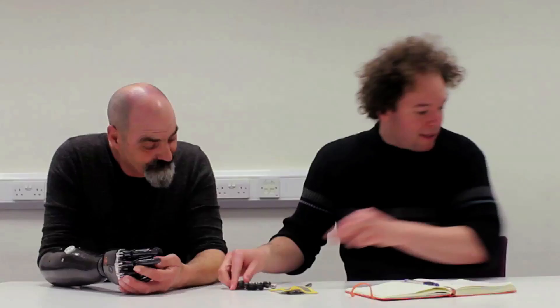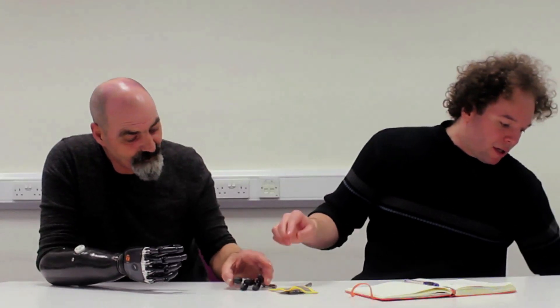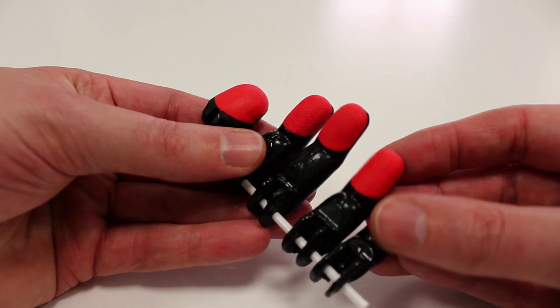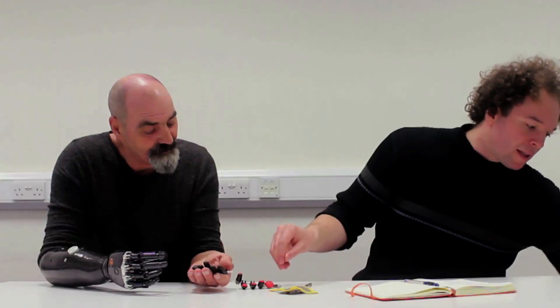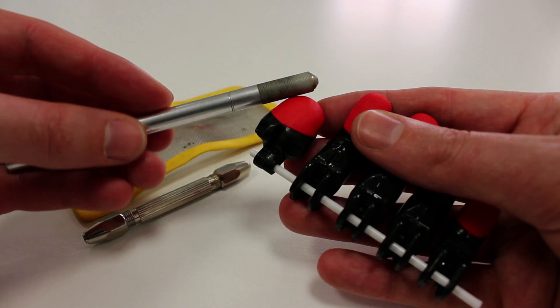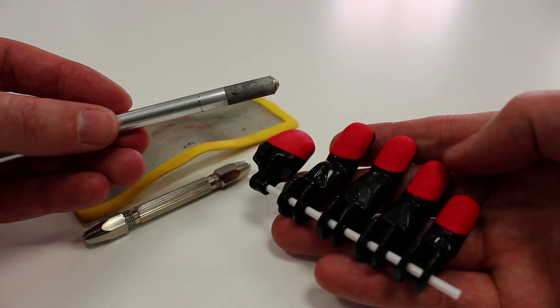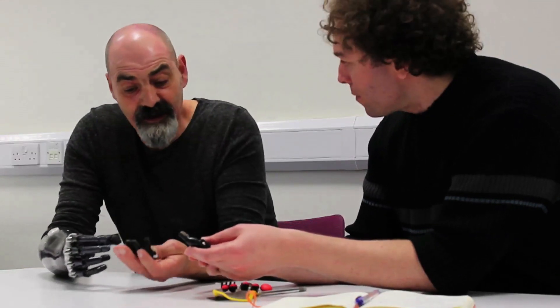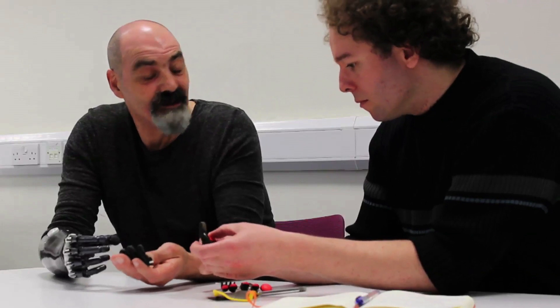Something I picked up from you is that you're not someone who's always been very shy. You said you don't want the pink over-skin tone. So obviously I'm choosing red as the extreme end, but of course you could go more subtle than that. You could create different variations, different grips — you could play around with whether these have different effects. Exactly, and it gives you back your individuality because you can do it yourself.